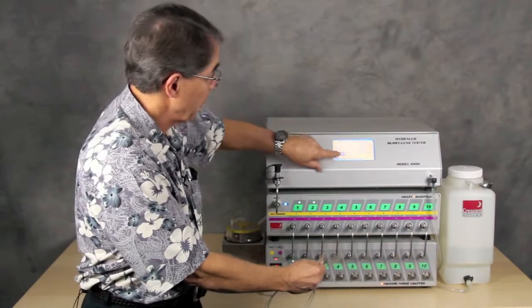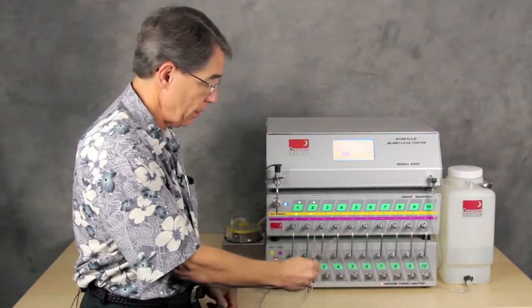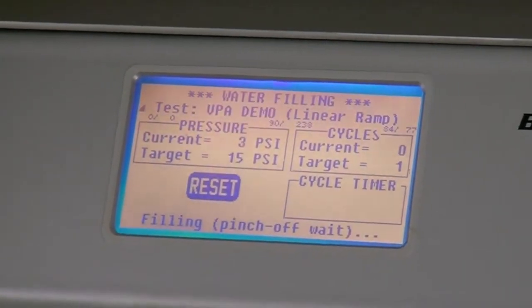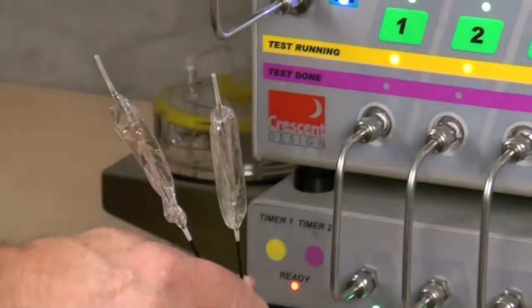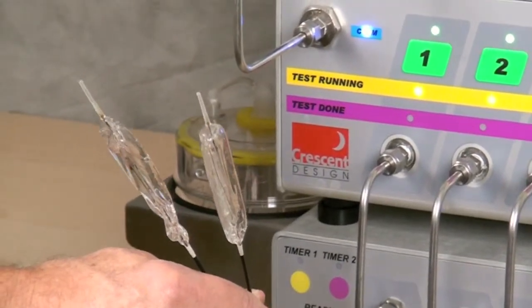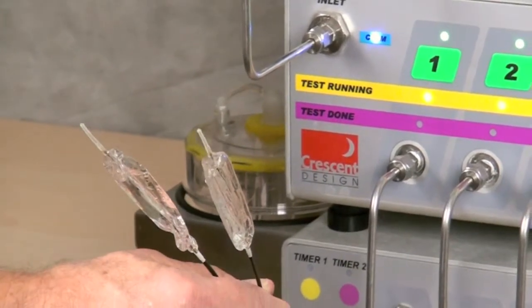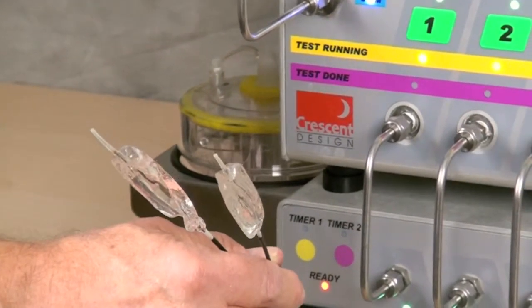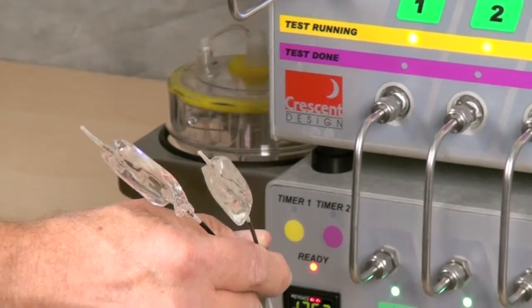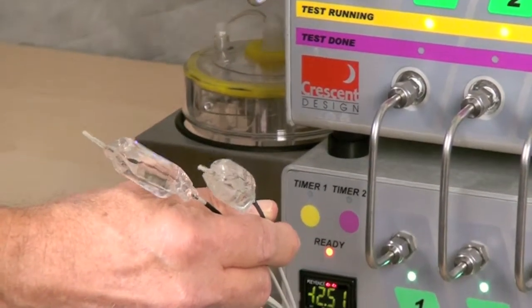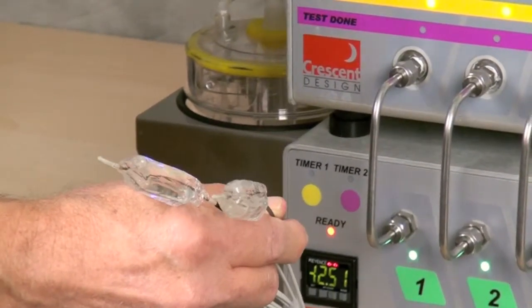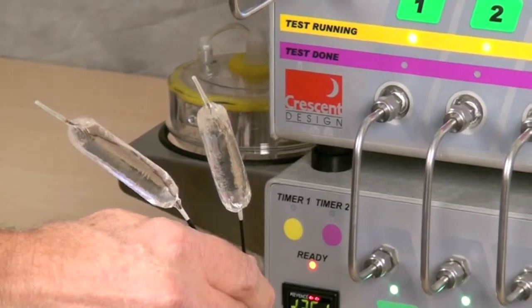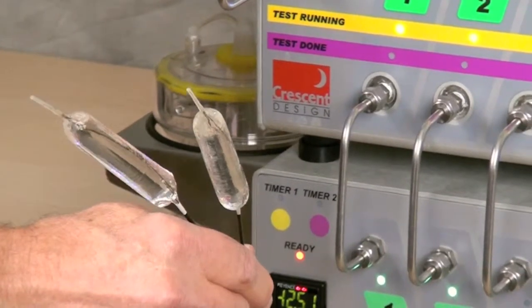So now I'm going to go up here and I'm going to hit this test. It's a simple ramp test, which starts with a fill, which you should be able to see. Anyone that uses a HBLT right now is familiar with this process of automatically filling the catheters. And so it's pumping fluid into the catheters until it reaches 8 PSI. And that will happen soon as they fill up and should be right about now. There.